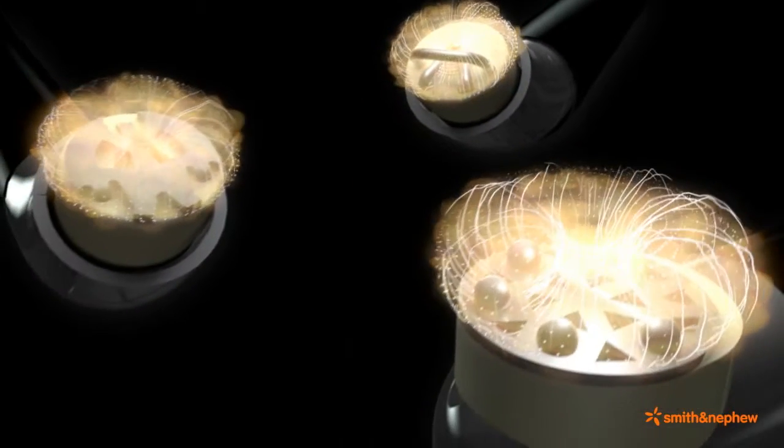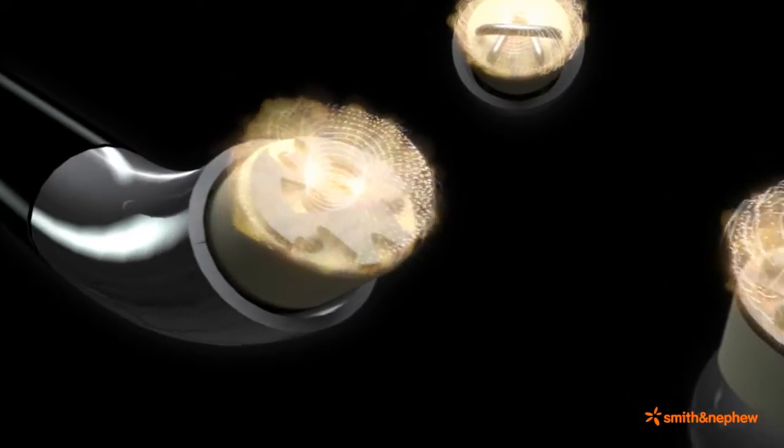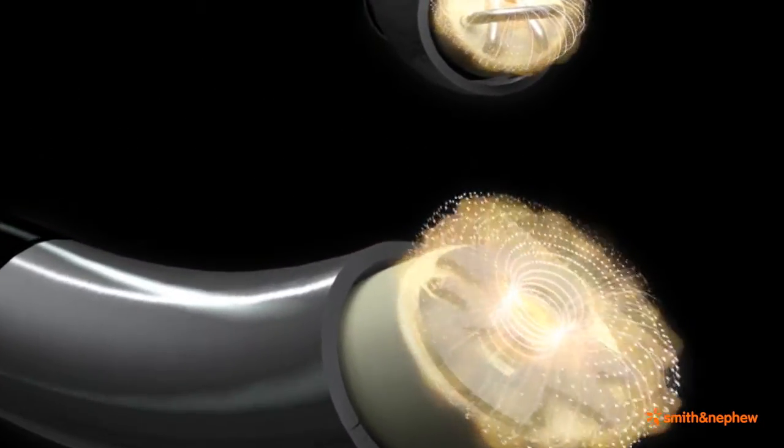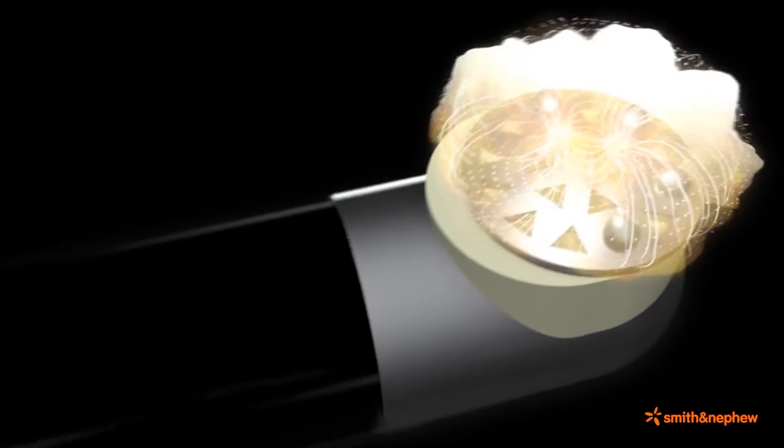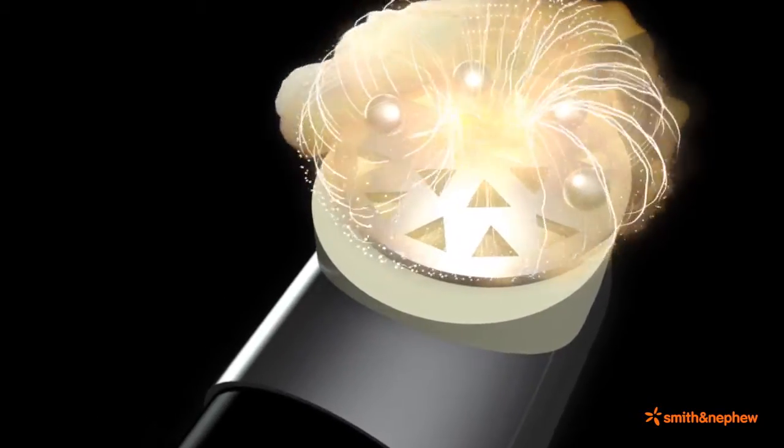The Smith & Nephew Coblation Platform, combined with proprietary multi-electrode technology, generates a stable plasma field with relatively minimal heat dissipation, resulting in precise operative results.